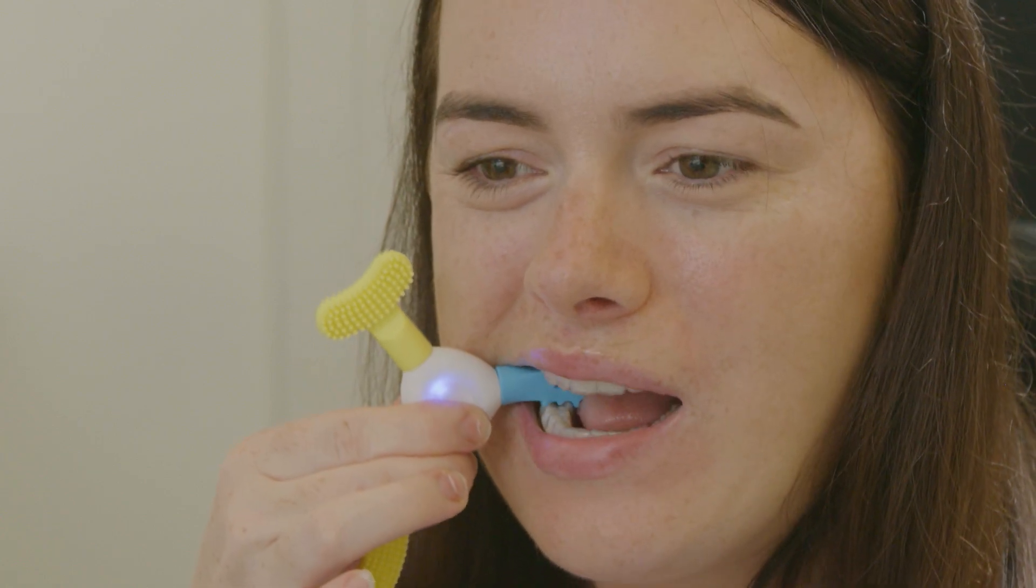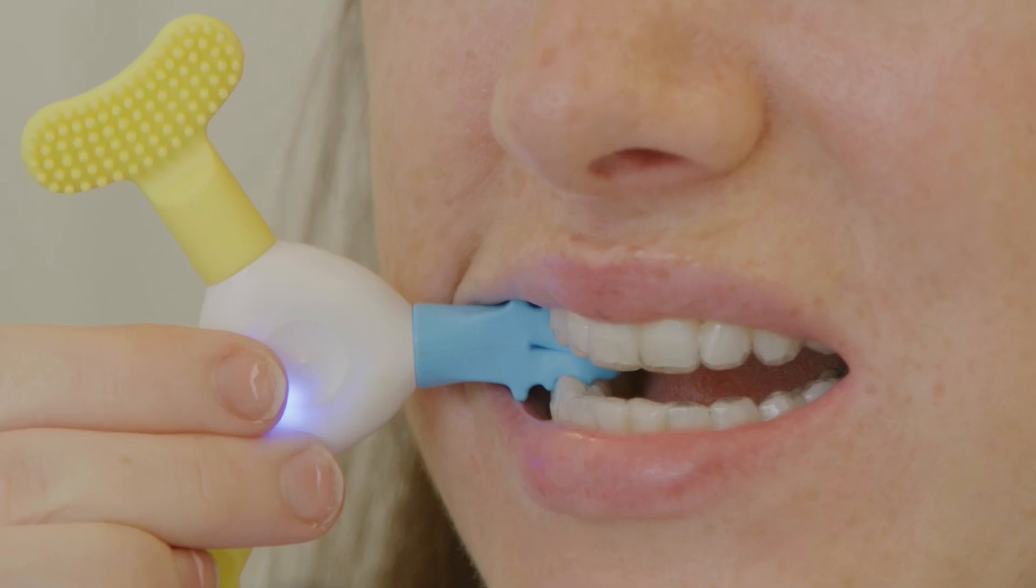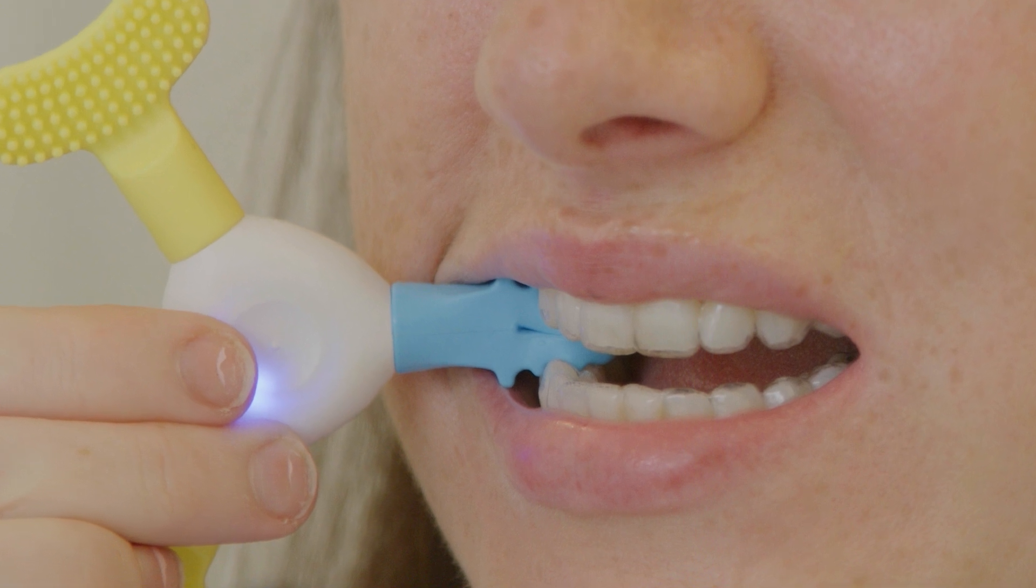Additional augmentation of acceleration is achieved by two minutes on each side of the mouth twice per day with the EPS vibratory ridged attachment.